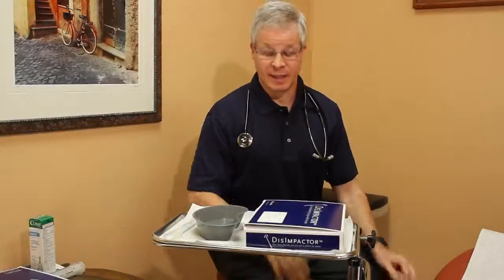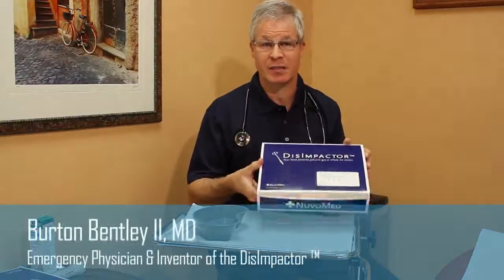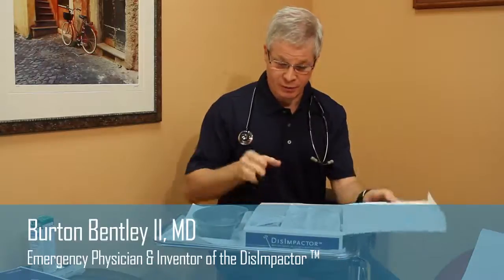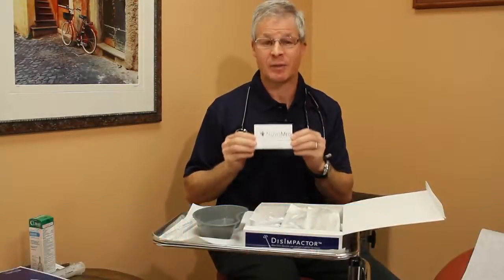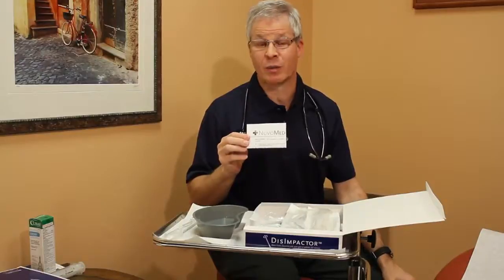Let's take our first look inside the DisImpactor box. So this is the prepackaged kit that you would be receiving. And in the kit, you'll notice the first and most important thing, which is the instructions for use. You have to be familiar with the instructions for use, obviously, before doing the procedure. So you'll want to read these, or you can also visit the website at www.NuvoMed.com, and they're obviously available there as well.